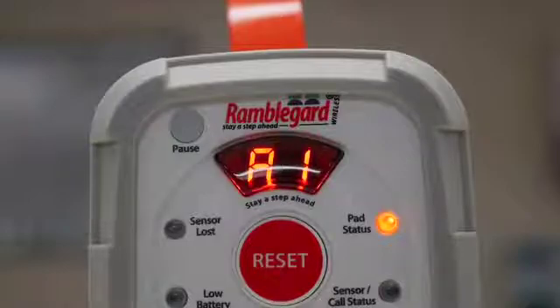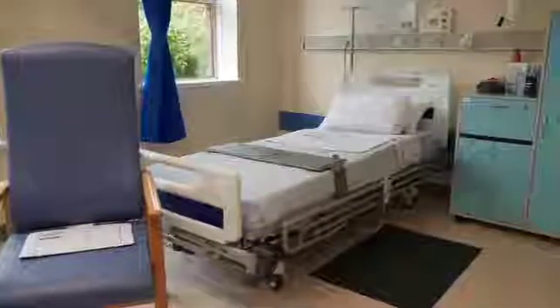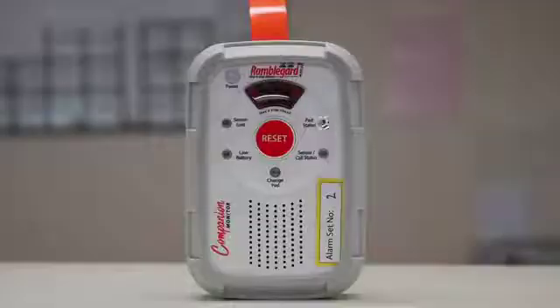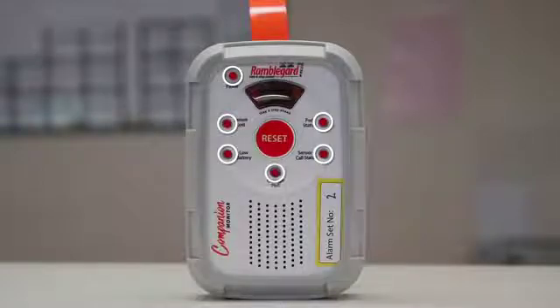It visually displays the alarm in a two-digit format matching the wireless display panel and also provides feedback on the status of the bed and chair sensor pads. For example, armed, on standby, paused, low battery, or active alarm by various LED indicators.